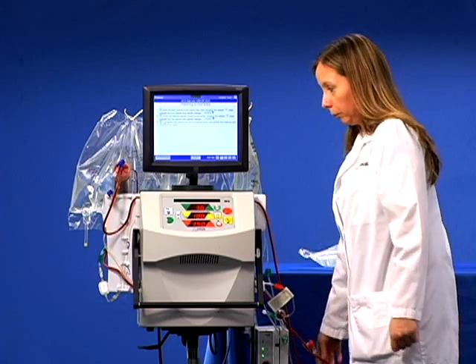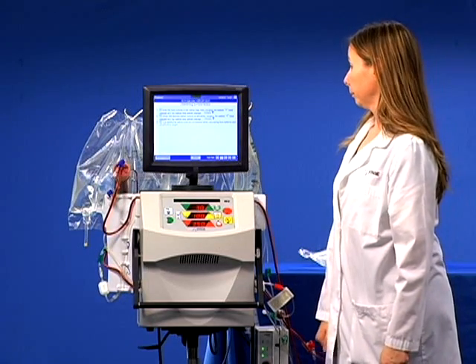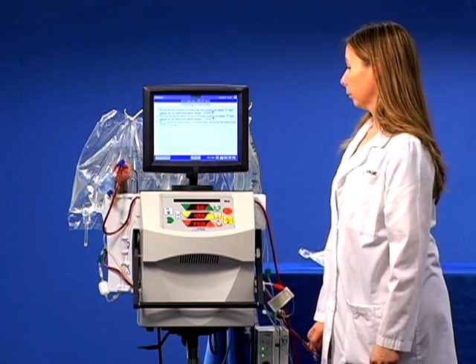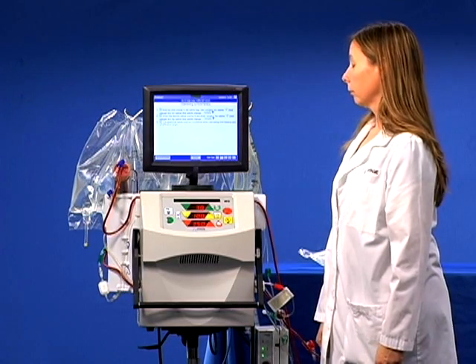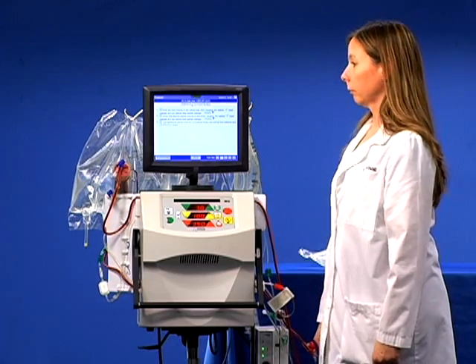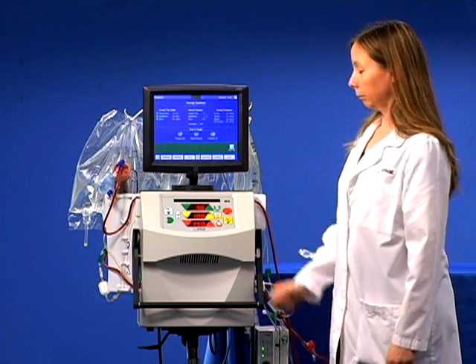This additional saline may be considered when calculating fluid balance and ultrafiltration target based on your hospital's protocol and the patient's fluid volume status. Congratulations! You have completed the module Delivering of Fluid Bolus.